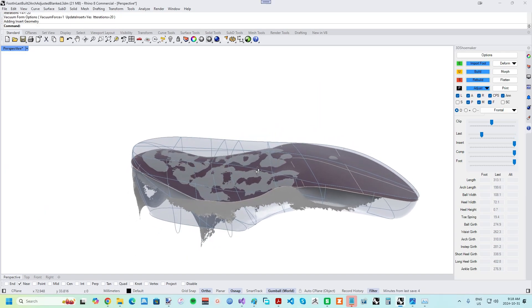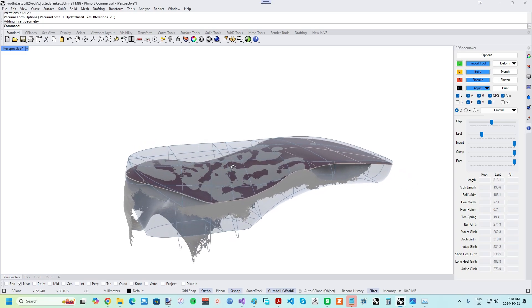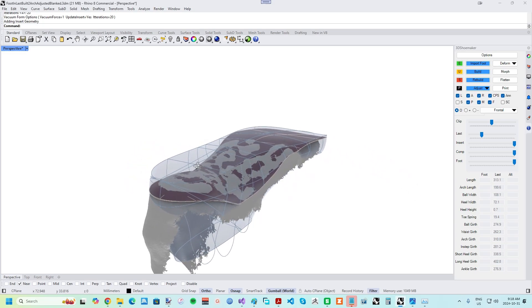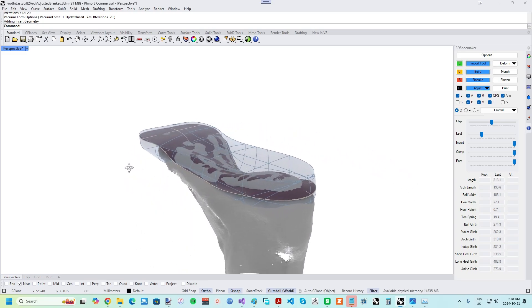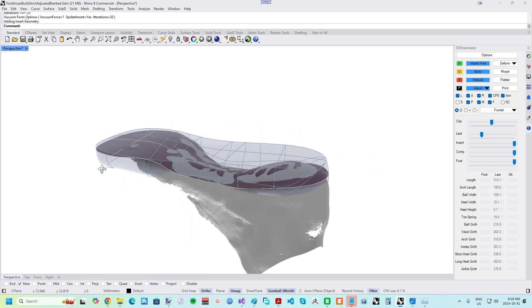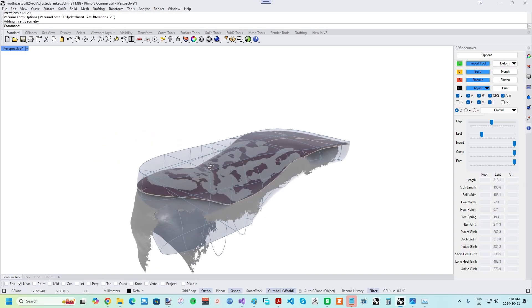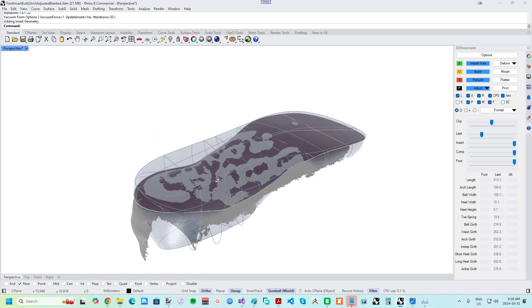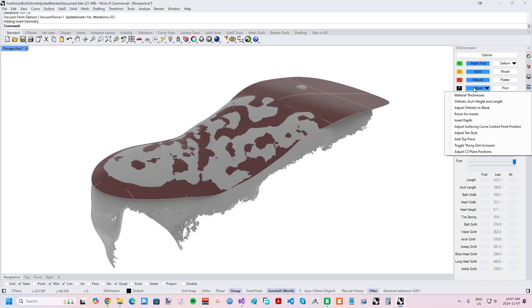The result is an orthotic surface that is a near match of the plantar foot surface behind the ball area, but of course there is a lot more to orthotic design than just matching the foot surface. There are numerous reasons for deviations from foot geometry. For starters, if the foot was fully non-weight bearing during scanning, simply duplicating the plantar foot surface may result in the arch of the orthotic applying too much force to the arch of the foot.